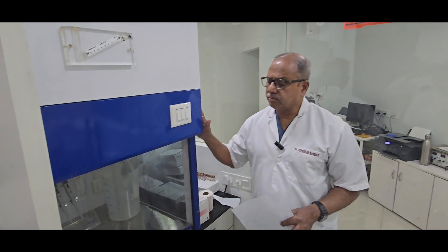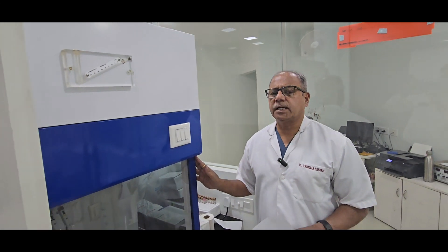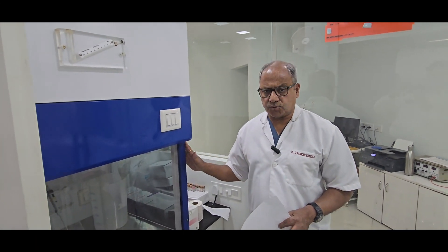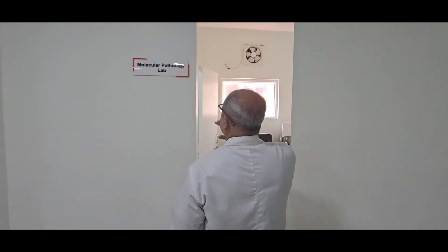This is the place where they do DNA and RNA extraction from tissue. Now I am entering into the infectious part.